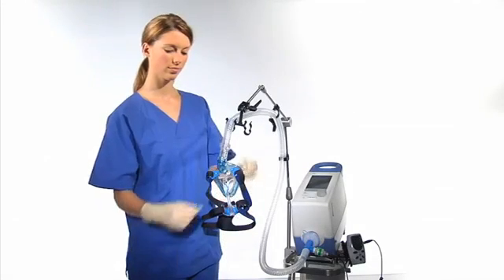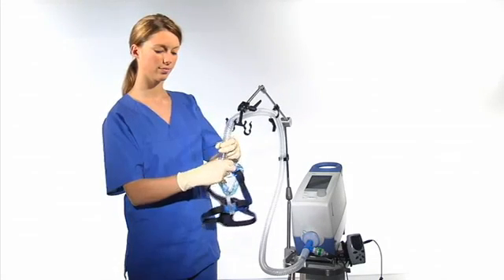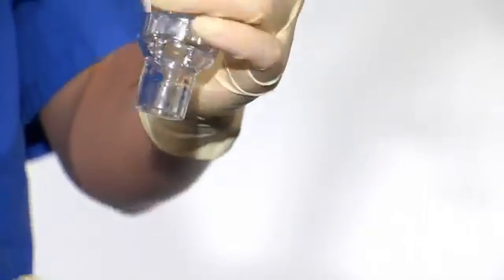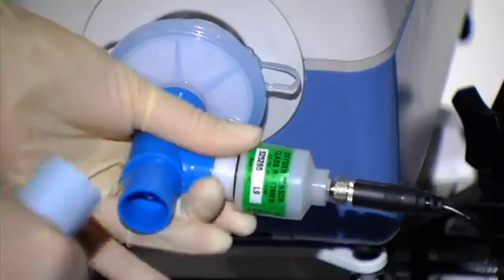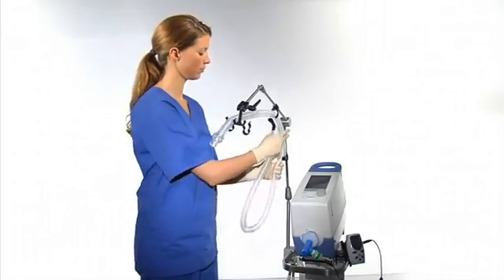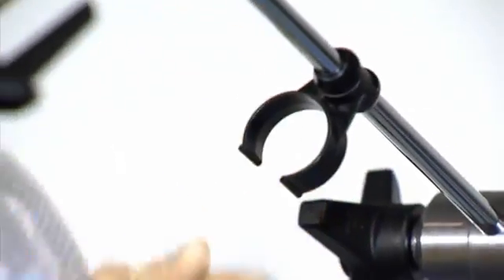Start by removing the mask, the leak valve circuit, and the filter. The reusable Novastar mask immediately goes into the hygiene procedure. The filter and the leak valve circuit are for single patient use only.